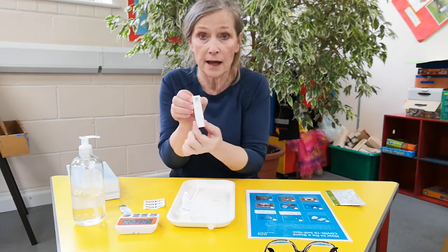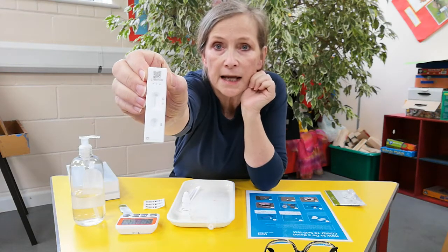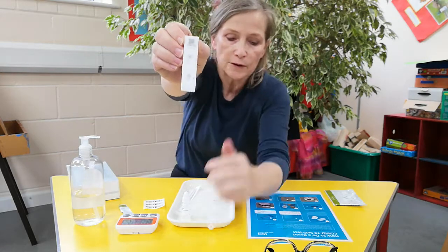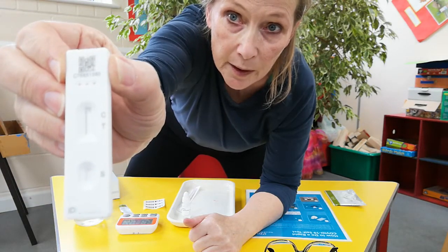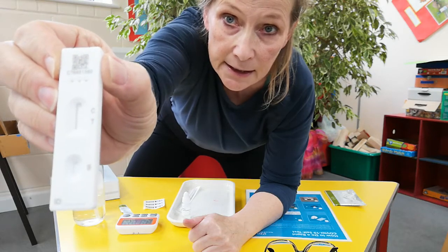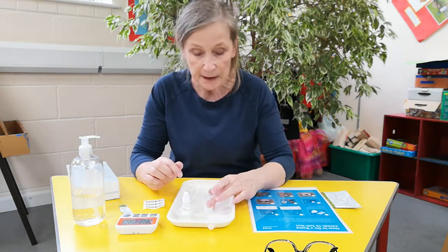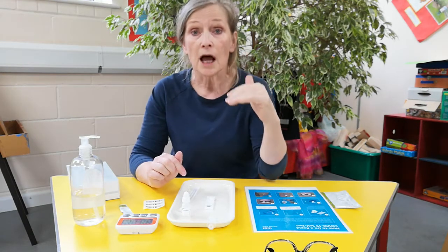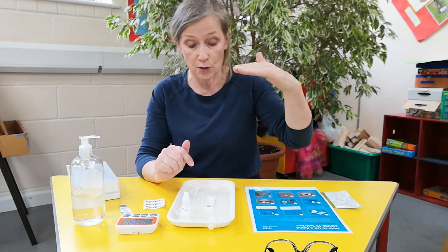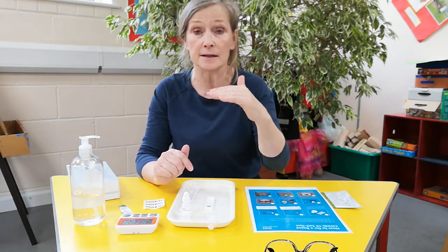Never touch it anywhere other than at the sides. If you look at it, you can see there's a little hole at the bottom and there's an S next to it — that's the sample port. And then there's another wider window at the top with a C and a T. The S stands for sample; that's where you're going to put the sample when you collect it. The C stands for control, and what you want to see when the test is finished is a red line across the C, because that means it's worked. What you don't want to see is another red line, because that means the T is positive.